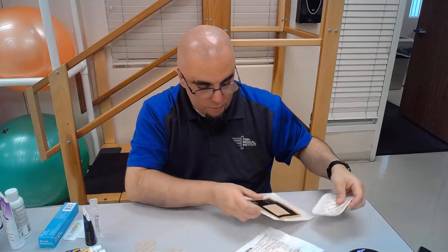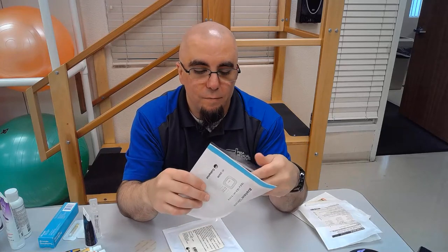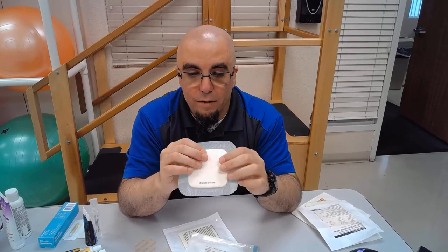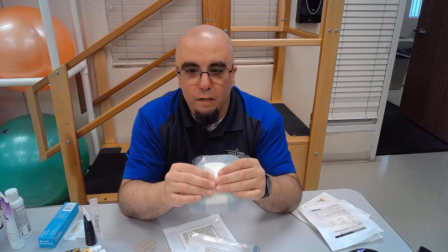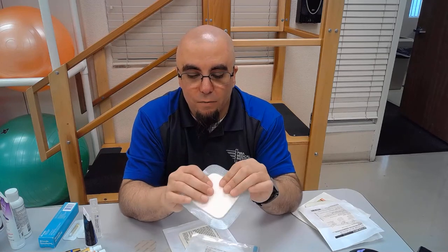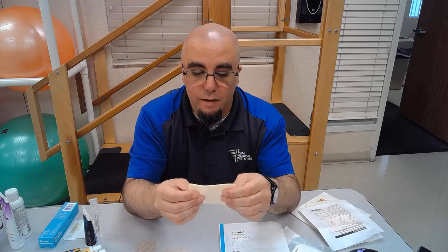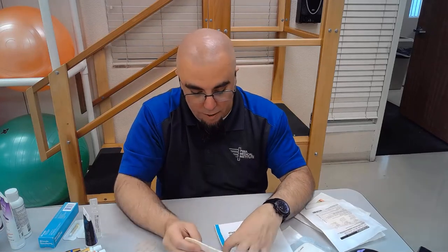Here are some Biatains — foam border gauzes. When dressing wounds over heavy bony prominences, these are often preferred. They have a nice thick layer that allows adherence to the peri-wound area via the adhesive tape. If a patient has an injury on something like the lateral or medial malleolus and plans to wear shoes, the shoe might dig in, so you want something with a thicker foam area to provide cushioning.